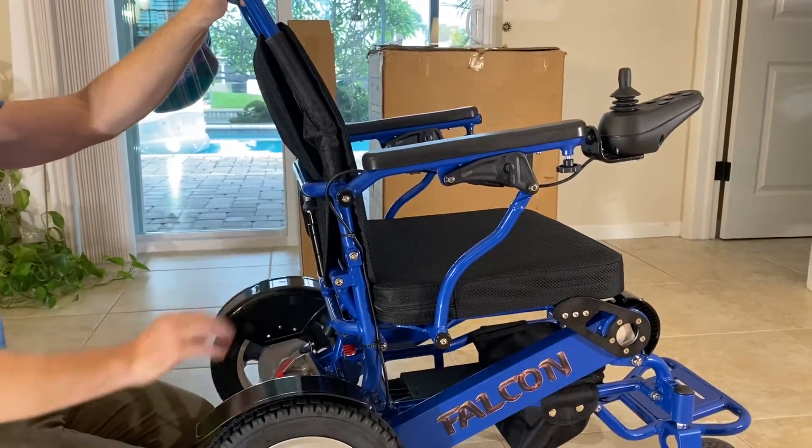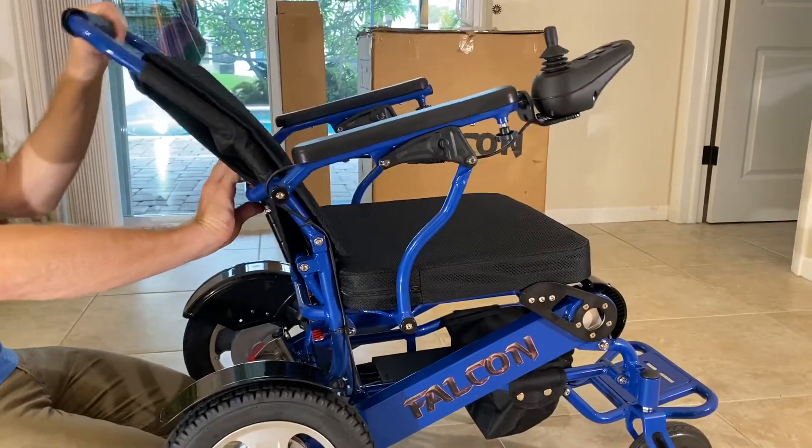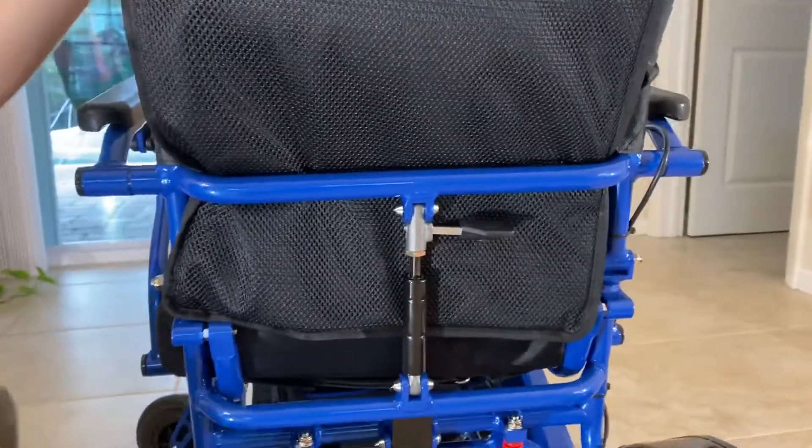So let's put the chair back. We can actually see how the armrests go back with the reclining ability of the chair. Now let's take a look at the one-of-a-kind universal reclining mechanism.